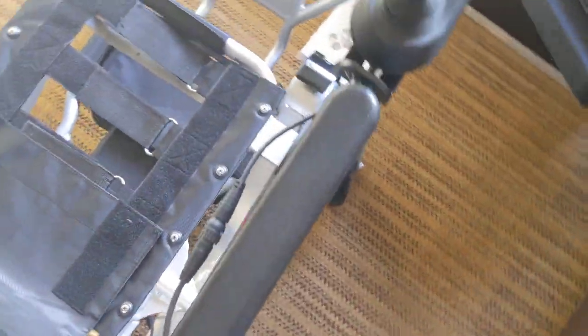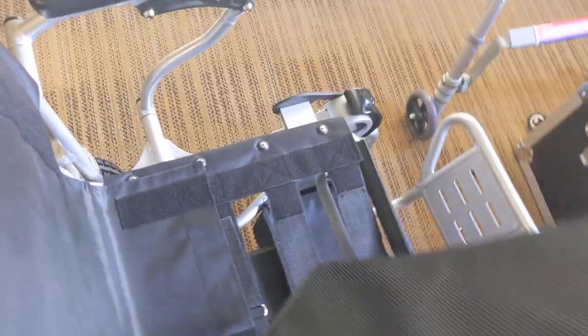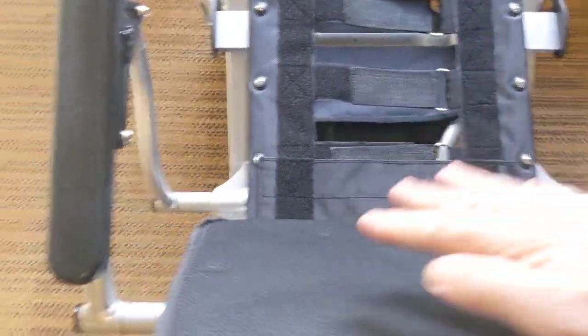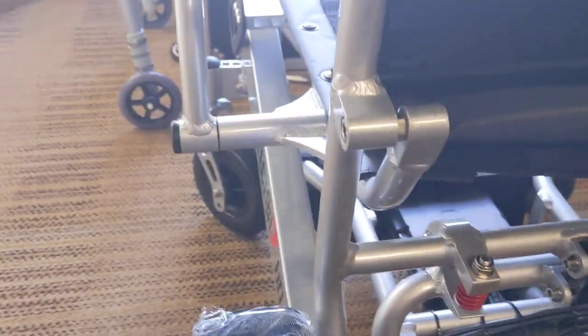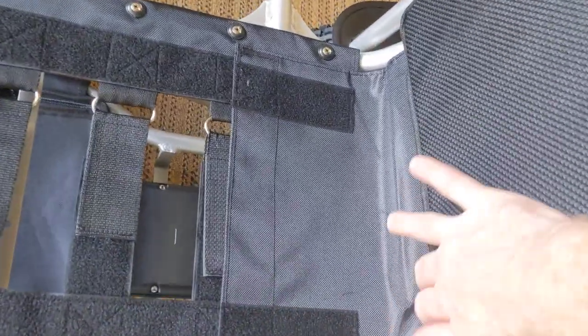The chair itself is made from aircraft quality aluminum, or 7003 grade aluminum. We have the back cushion that fits right over the back of the chair — I've just taken it out of the package, brand new, hasn't even been driven yet. It fits right over top and secures into place. And then, of course, you have the lumbar support that goes underneath this.